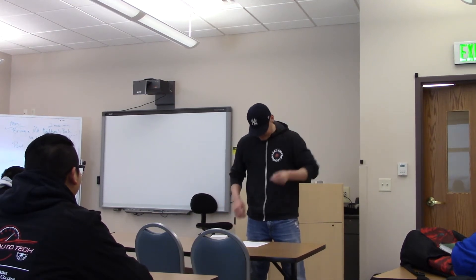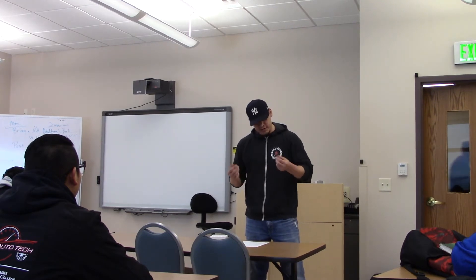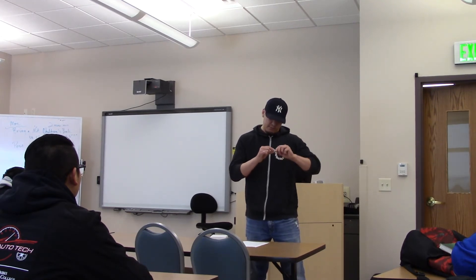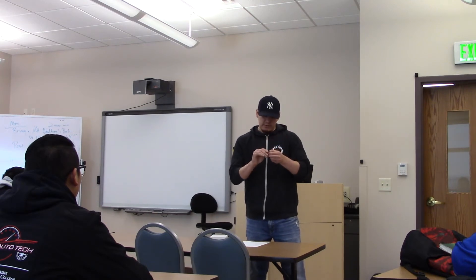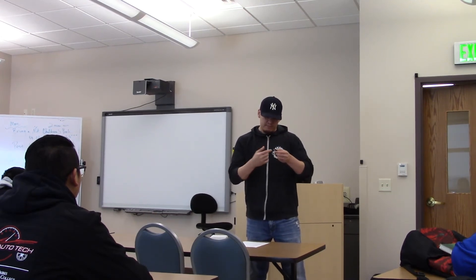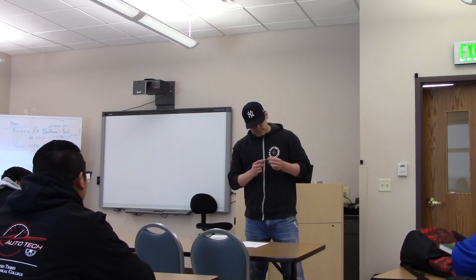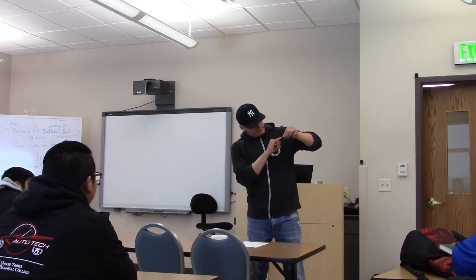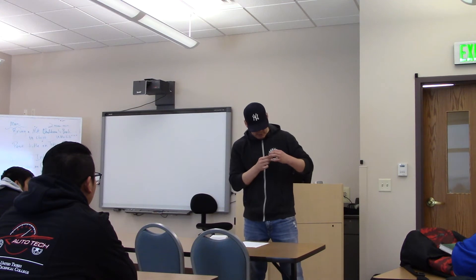So this is it. Usually when I take it out, there's a battery in here, and there's a black part that goes around the ear, because if I don't pull the battery out, it whistles. There's the battery part that goes in there, and then there's a little microphone inside that sends the hearing part through here to the inside where my eardrum is.